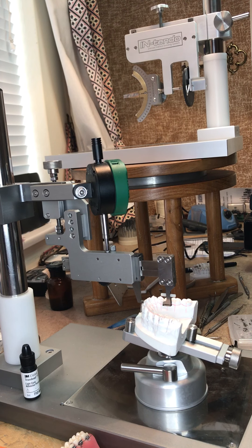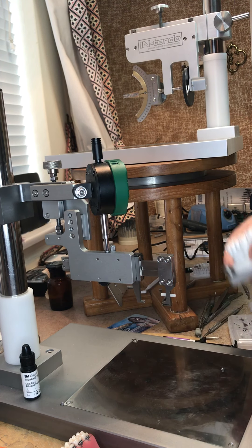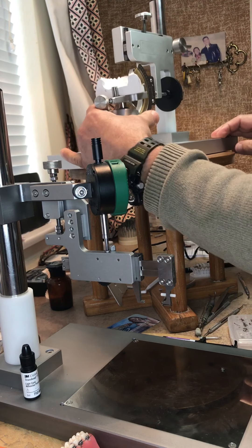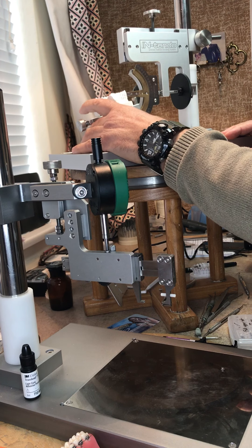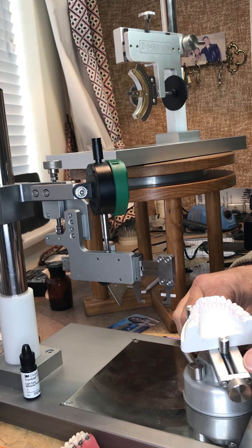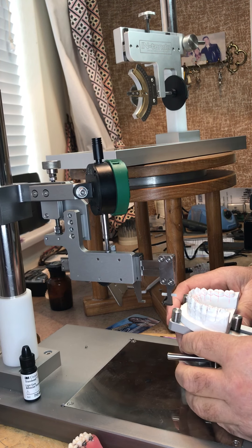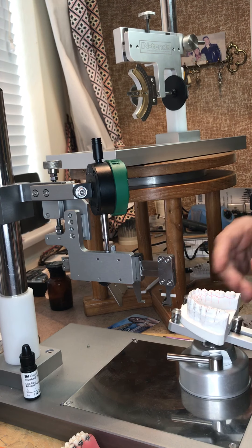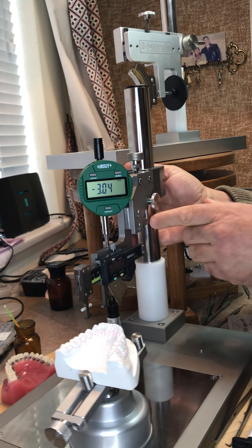I'm going to show you how I use the BPD — bracket positioning device — after we have programmed this tooth to zero degrees. I programmed it by moving the tooth to fit to the blade, not the blade to fit to the tooth, and I bring it over to here, which is the same base, same column. The BPD is the TTS so everything aligns.